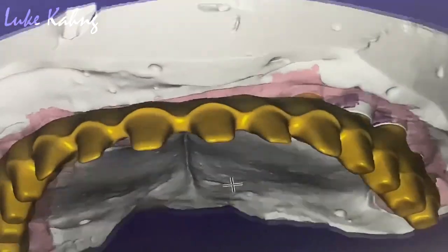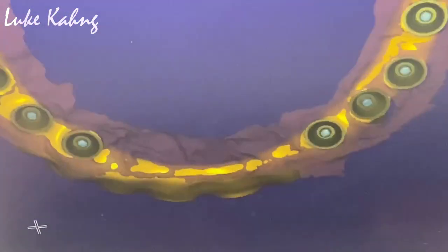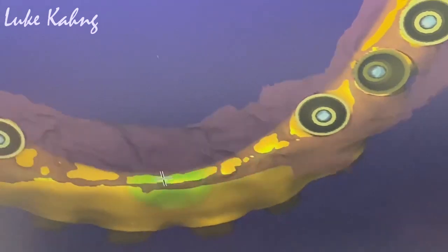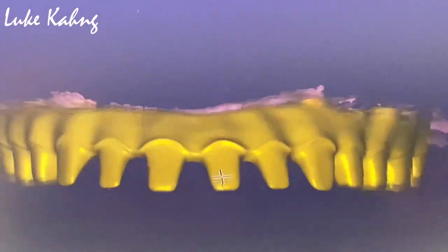Can I see the underneath? What does it look like? It's great — love it. Now what are you going to do? We're going to go to metal? Polish? Underneath we can do metal polish. Alright.